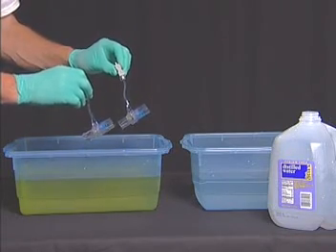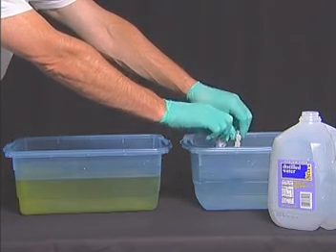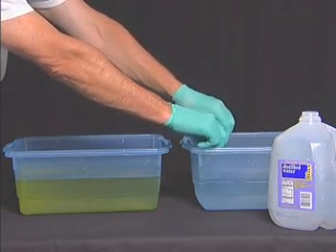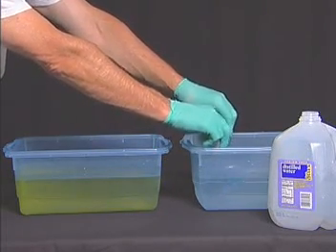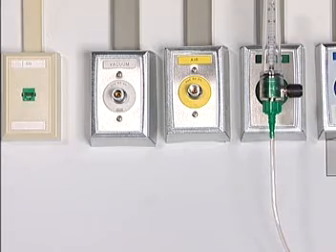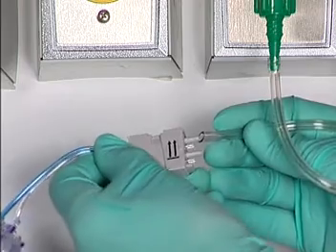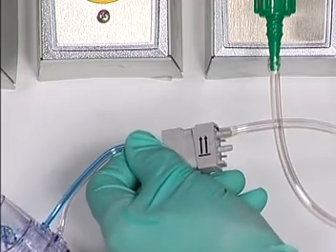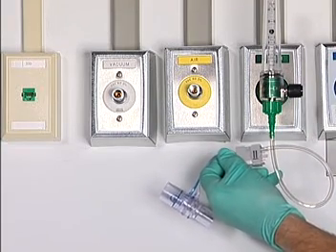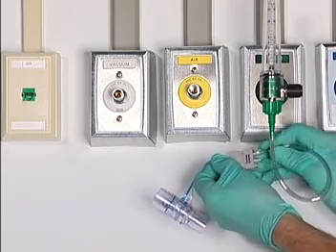Keep the sensor in the solution for the sterilization period. Afterwards, submerge the flow sensors and tubes in distilled water. Again, do not get the connector wet. Rinse as indicated in the Cidex instructions. Submerge and rinse several times to remove all the Cidex. Make sure to completely dry the flow sensors and tubes before using the sensors. Please consult your user's reference manual for complete flow sensor cleaning and maintenance recommendations.